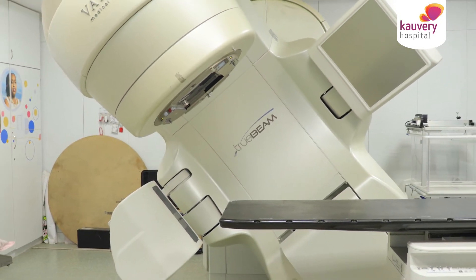How do we use radiation therapy? There are many methods — we have external beam radiotherapy, we have brachytherapy, that is the use of radiation sources near or close to the body. External beam radiotherapy is usually delivered by a linear accelerator. In a linear accelerator, we use high energy x-rays.